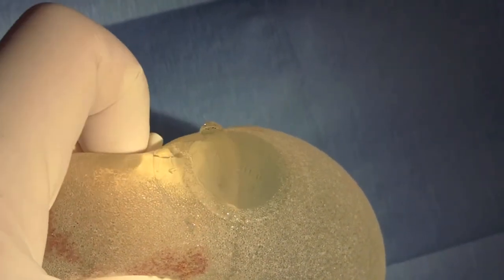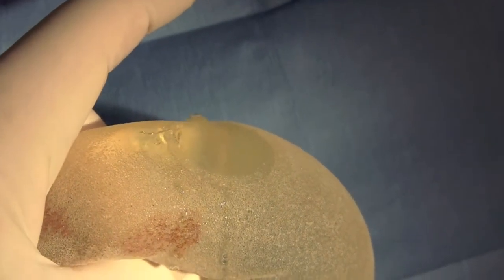Implant technology has improved, though this still remains a weak spot and is one of the more common places for an implant to leak.